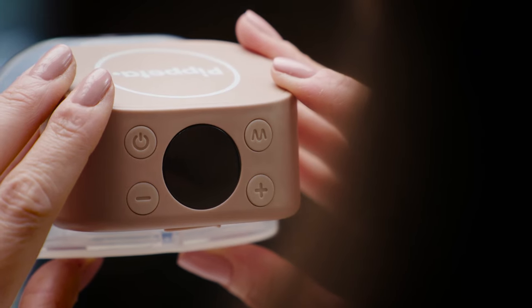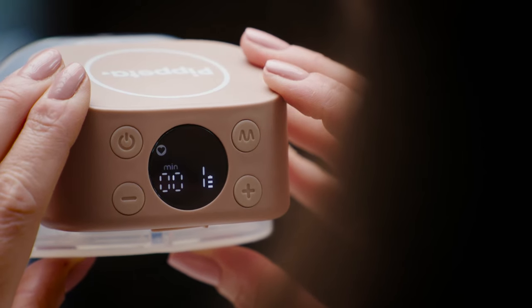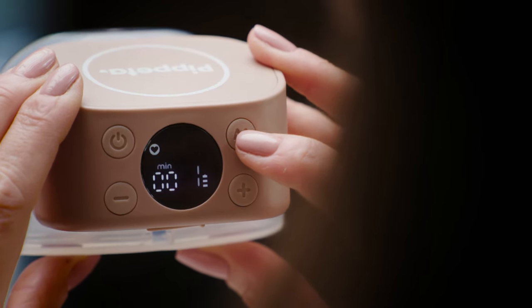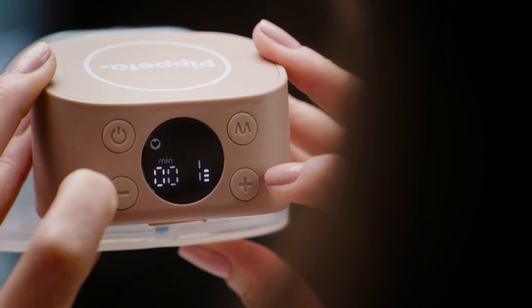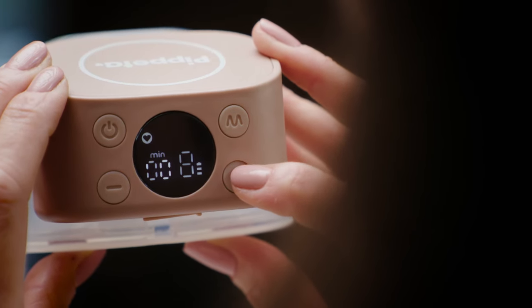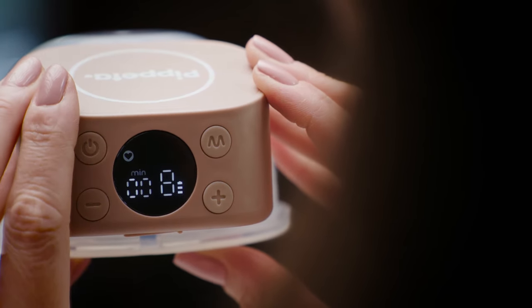This is the motor for the pump. Here is the on and off button, along with the mode selection button, to which you can choose between four different settings: massage, expression, lactation, and automatic mode. Here are the intensity level buttons for each of the four modes, that range from level 1 to 12. Choose the intensity level that's comfortable for you. The battery level is positioned here, along with a timer to show how long you've been pumping, with an automatic shut off after 20 minutes of pumping.